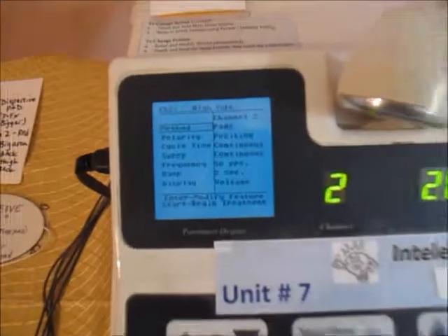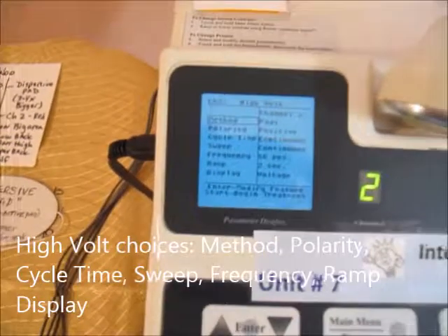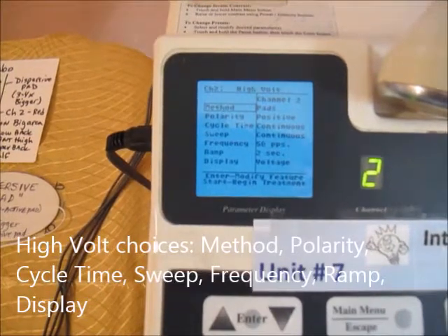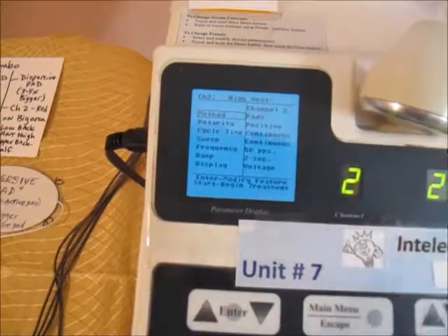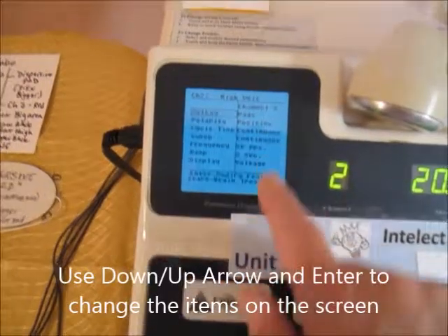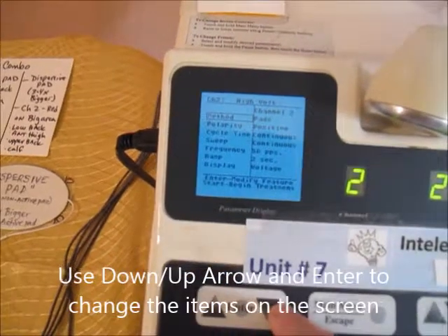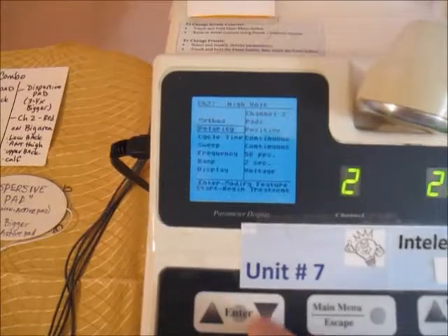So let's go look at the HiVolt screen right here. What we have here are several different choices. You have polarity, cycle time, sweep, frequency, ramp, and display. You can list them over there. Each of these will be controlled by using the down-up arrow and then enter for changing the things on the right. For the method, we just leave it as pads. For polarity, what we're going to choose is negative.